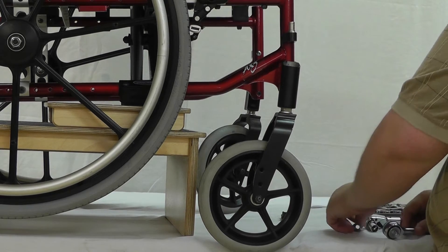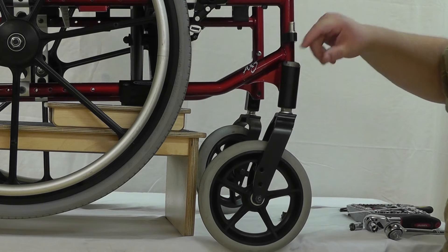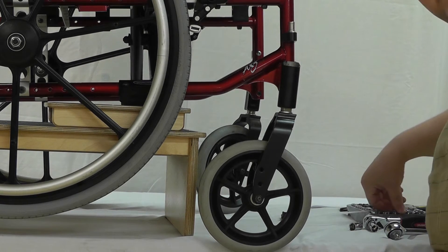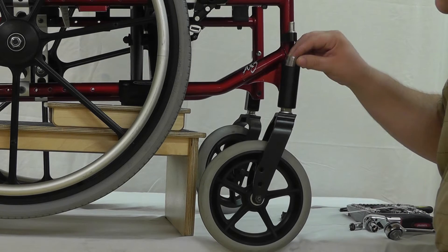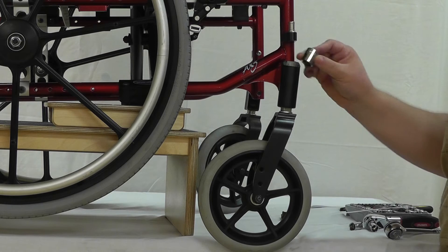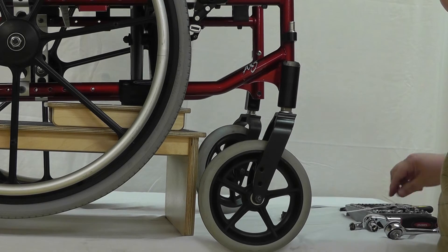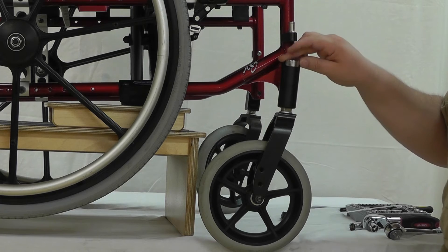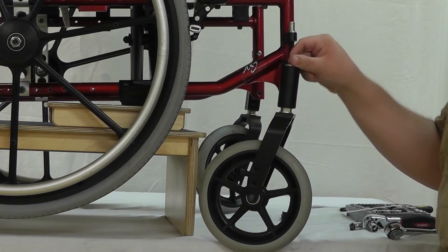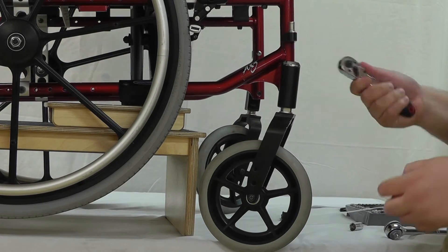Down here you're going to need your wrench and a socket. You basically just have to try them until you get the one that fits just right, and it looks like I have a winner — which is going to be a 3/4 inch socket.